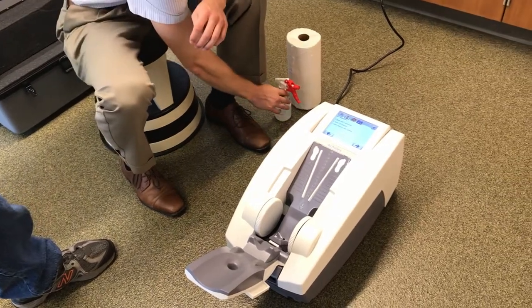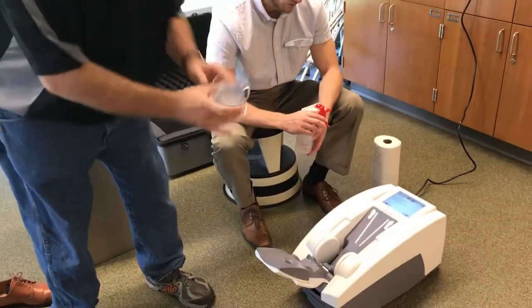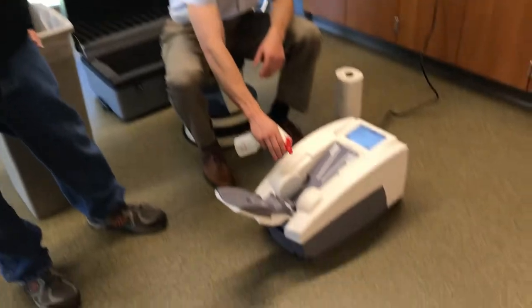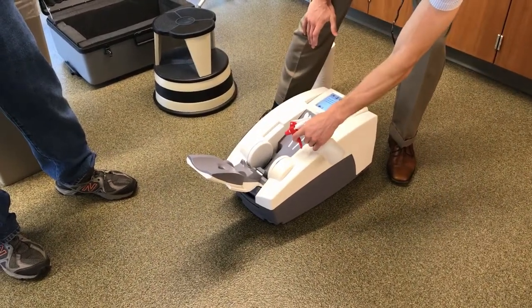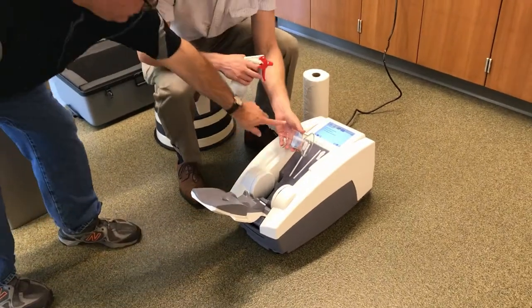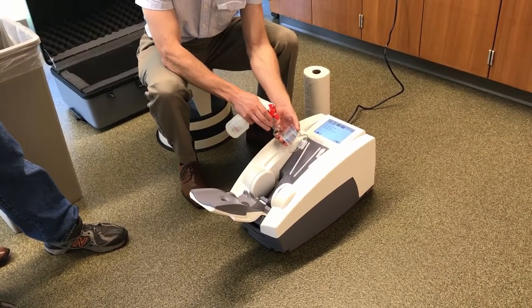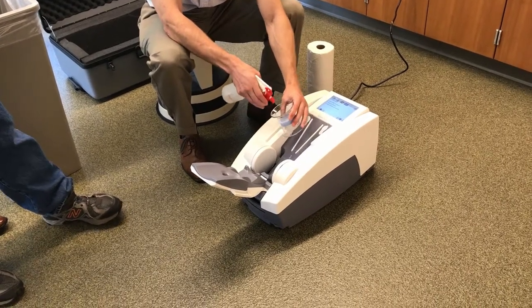Grab your alcohol spray. A warning: for both patient testing and the QA, you really can't use too much alcohol, but you can use too little — so it is better to overspray. You don't want to make yourself keel over from the fumes, but you do want to very liberally spray both of the membranes, and then spray both sides of the phantom before you put it in there. It's going to drip and make a little bit of a mess, but that's okay. Make sure you get both membranes well liquefied. Hold the phantom away from you and spray, especially the edges — you're not just trying to spray the middle, you're trying to get the edges where the membrane will come in contact with it. Flip it over and do the other side, then set it into the vise.